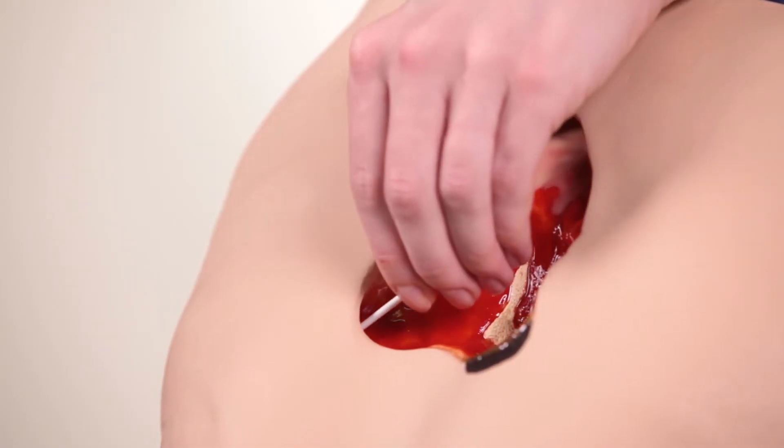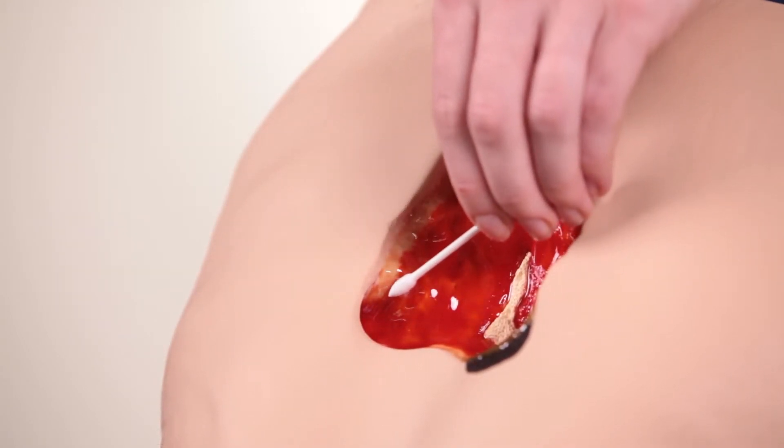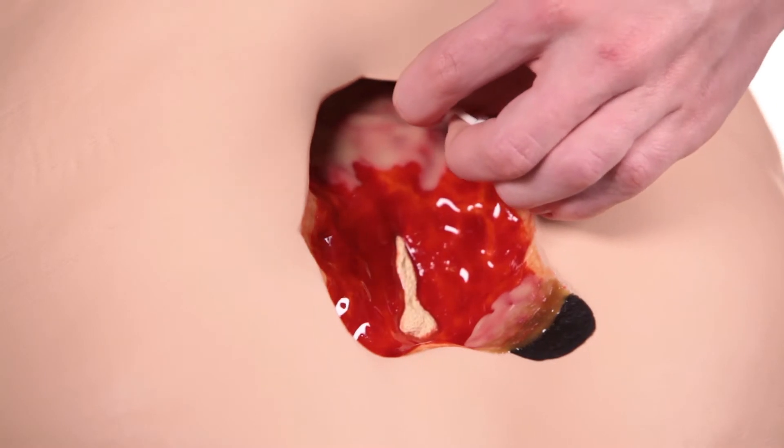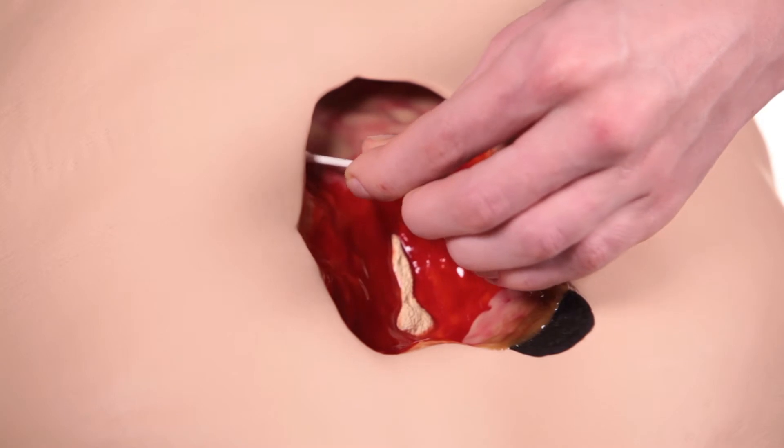Stan is also a great tool to teach proper measuring skills, which is critical to ensure all staff are measuring the same way so that charting is accurate. With this information, the current treatment plan can be evaluated.